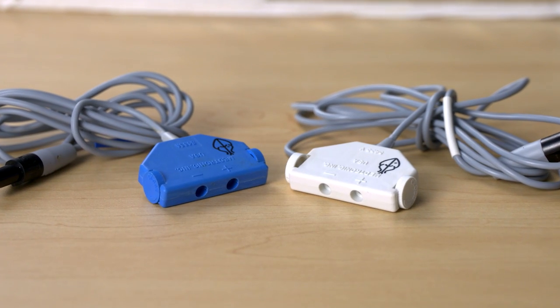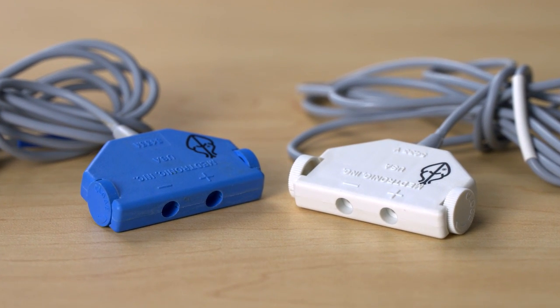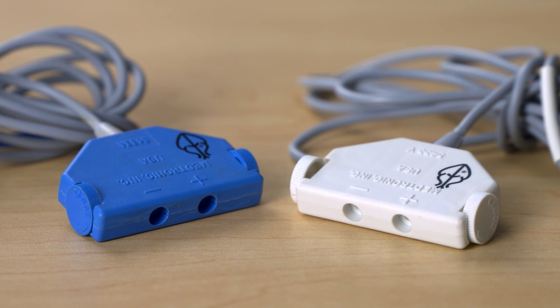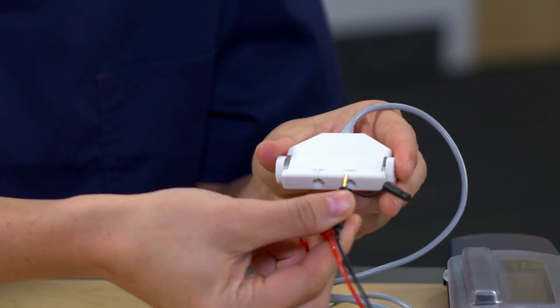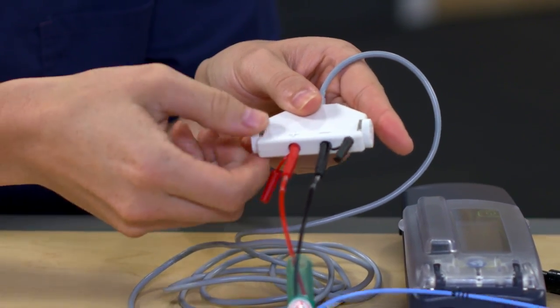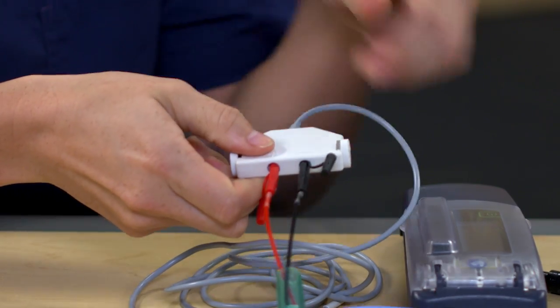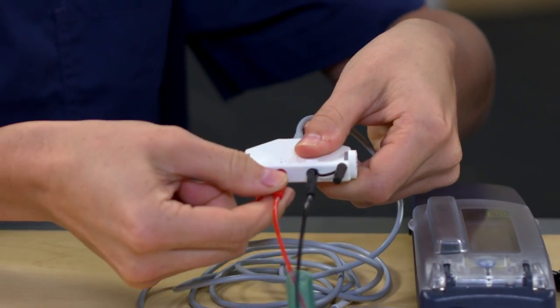Take a look at the end of this cable — it looks like it will accept a lead directly if it has exposed pins. You can see the positive and negative ports marked on each one. Go ahead and place the lead: match the negative lead portion to the negative cable port and do the same for the positive portion. Then use your fingers to tighten them by turning the thumb wheels until they're snug — no tool is needed, as using a tool could cause damage to the cable. Just tightening with your fingers is sufficient. When you're done, give a slight pull just to make sure they're secure.